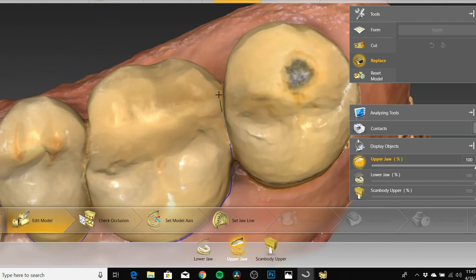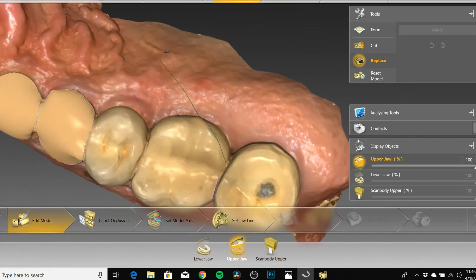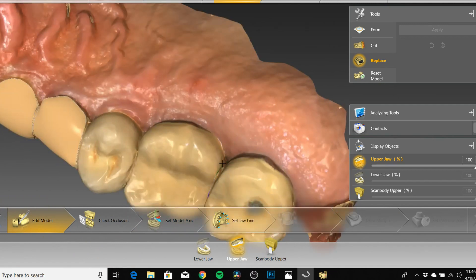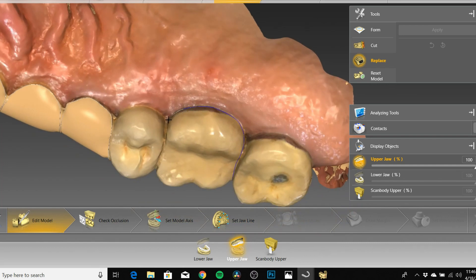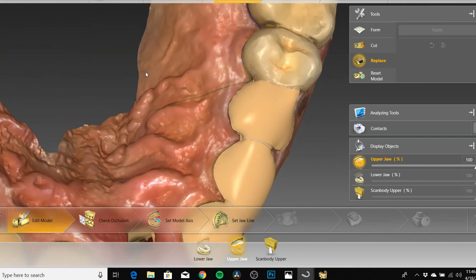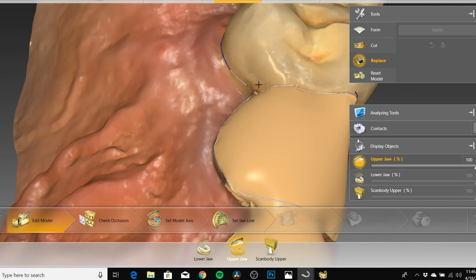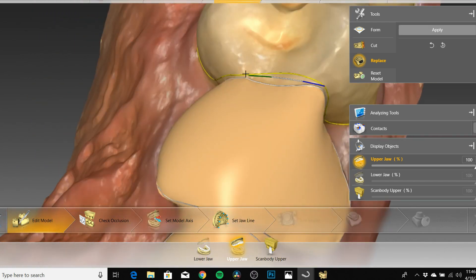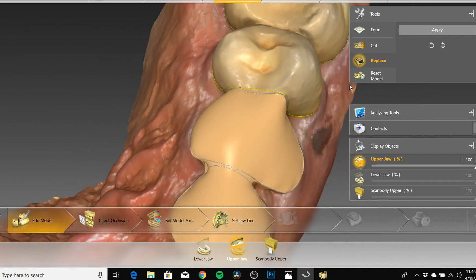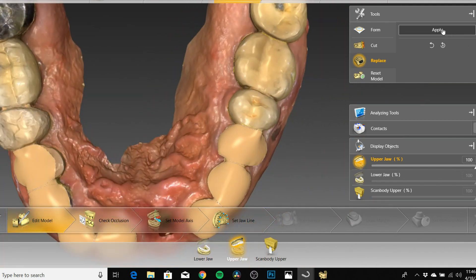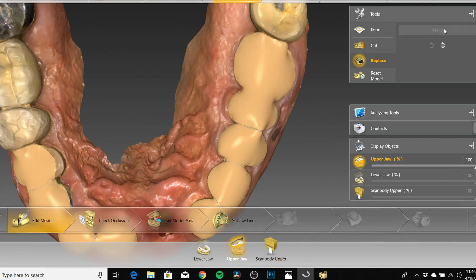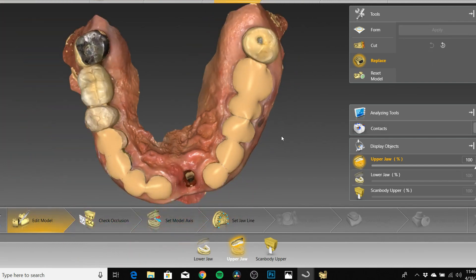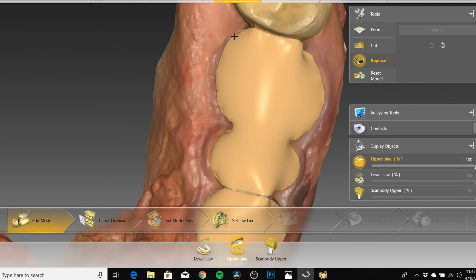When you do your crowns, you're gonna have a really good idea of where they're gonna be placed — you're not just randomly throwing crowns on a blank slate. In the model phase it's kind of difficult to maneuver the scans; it's not as easy as when you're designing a crown. We're just gonna go all the way around, and once we've got everything attached we'll leave it there. You can edit things after, but for the sake of this just being an example, this is okay. Then we're gonna click Apply, and you've got your virtual prep.